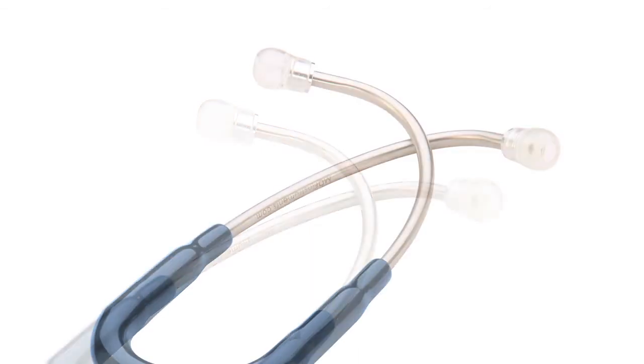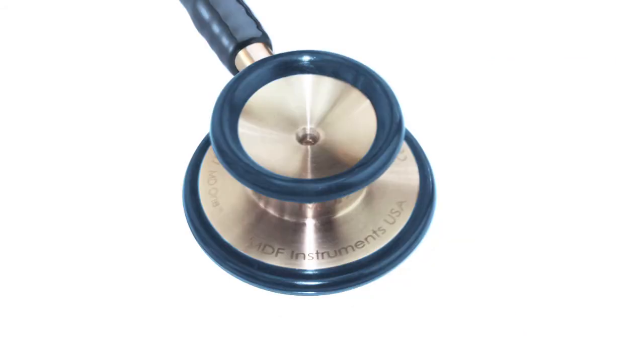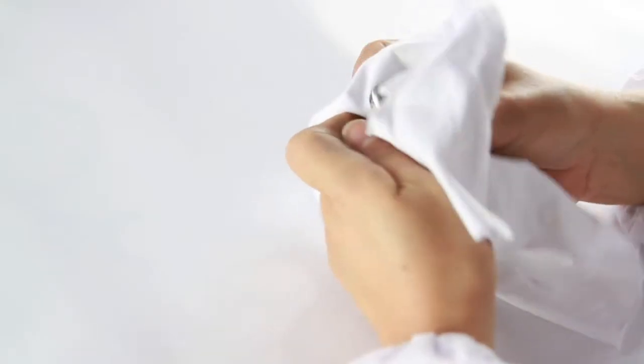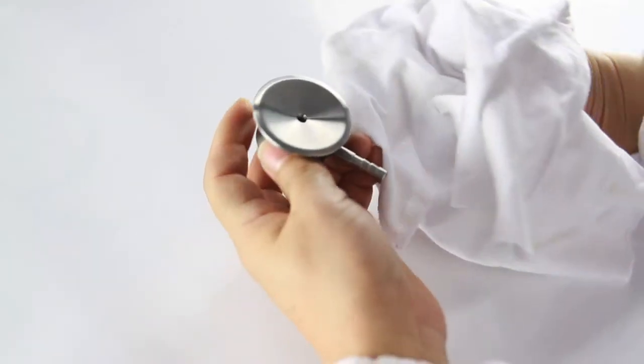Then we added all of our suitable patents and features into the eartip, into the headset, the tubing, the acoustic valve stem, and also the chest piece. So as a result of us tinkering with the chest piece, we achieved better acoustics, and now it's easier to use.